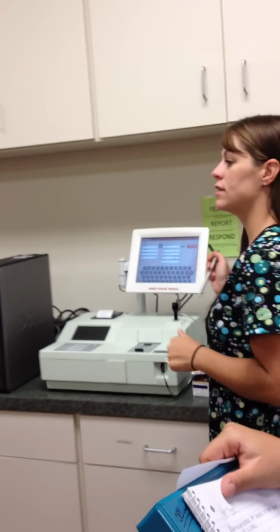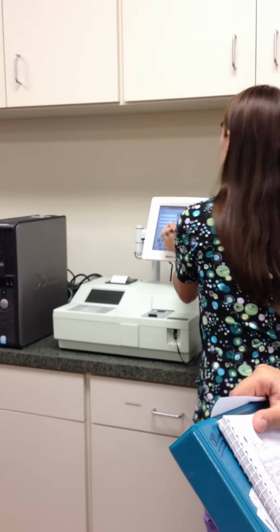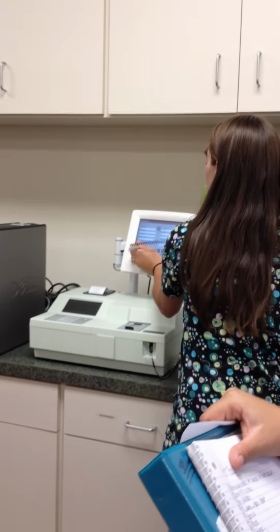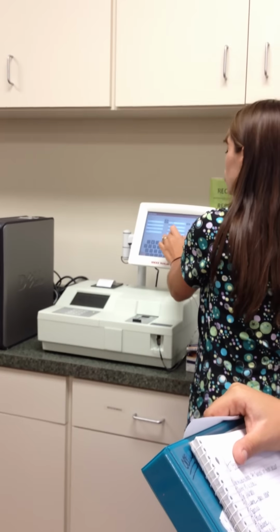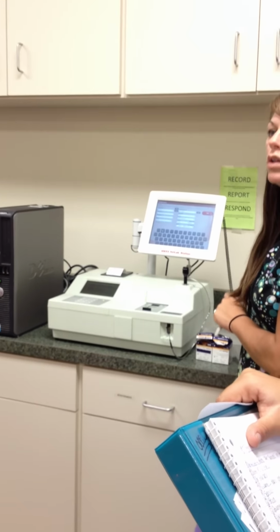They currently are at that exact moment when you drew the blood. Okay? All right, age. We're going to put her age in here. She doesn't have one, so we'll make her 2 years old, okay? You can choose years or months, whatever it is, and then it will automatically give you a life stage.